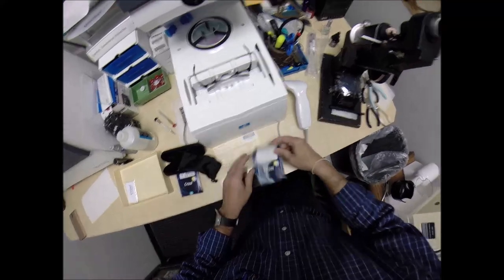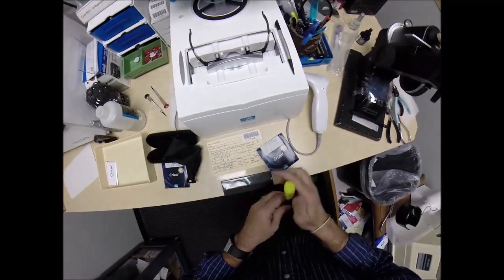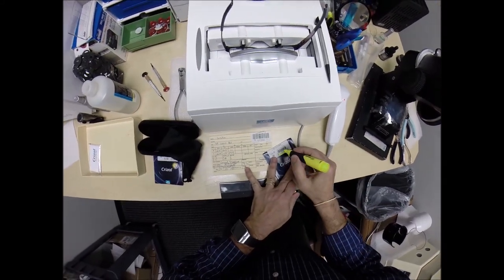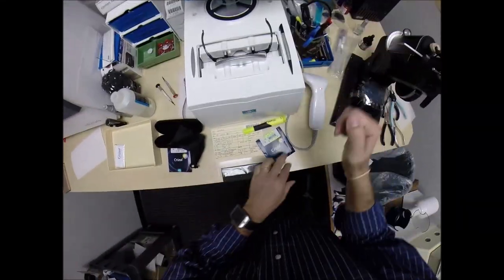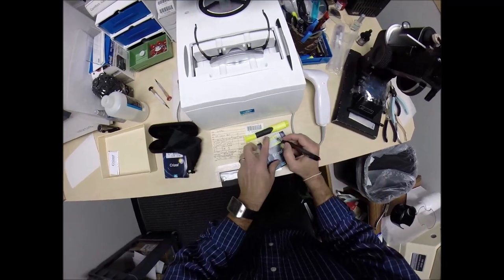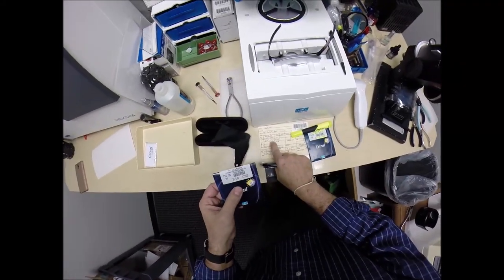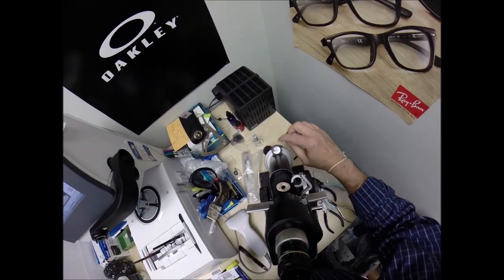Let's do the same thing for the left. Let me mark this one as the right lens. Minus 2.25, minus 2 at 111. And your left lens, minus 2.75, minus 1.50 at 45.